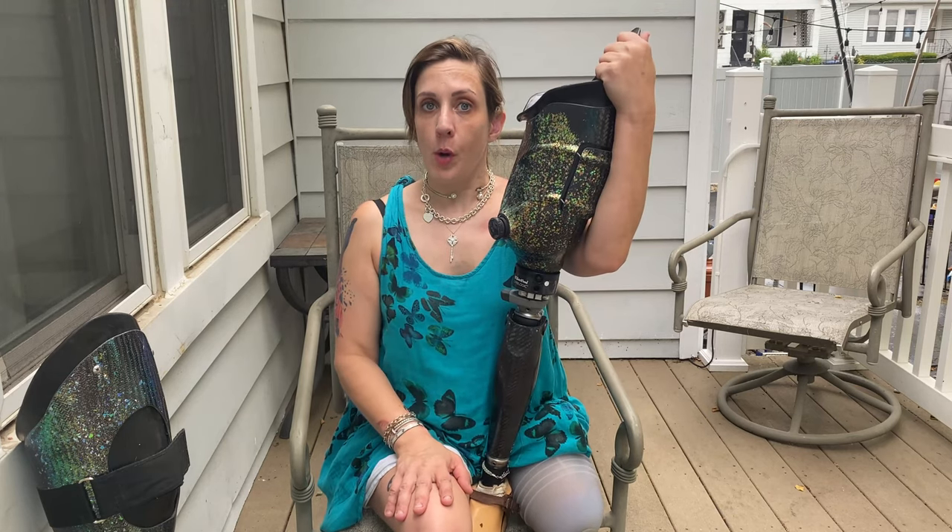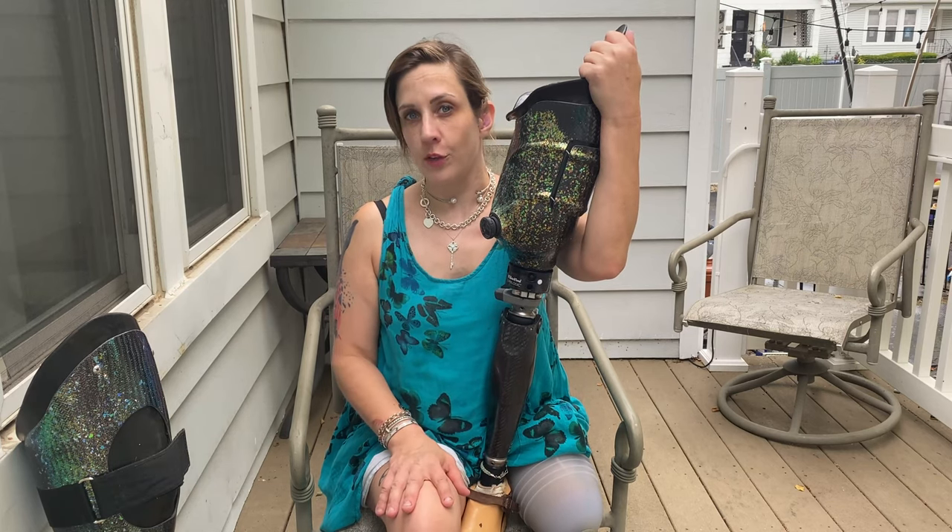You can even have more than one BOA in your socket, so you might have two knobs — maybe one for the front and one for the back. By the way, the reason it's called a BOA is because it tightens down like a BOA constrictor.